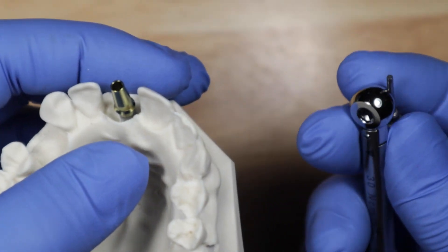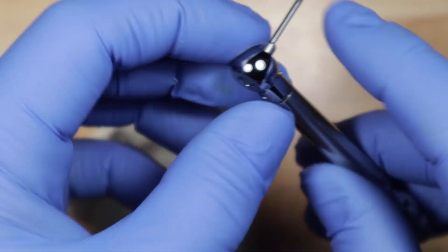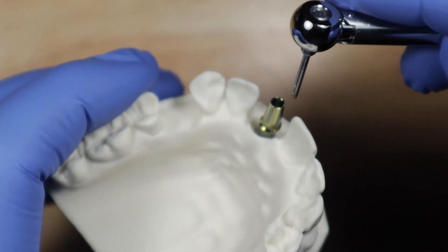Just a minor little detail that might save you some frustration. If you attach these two first and then you go for it and try to put it in there.